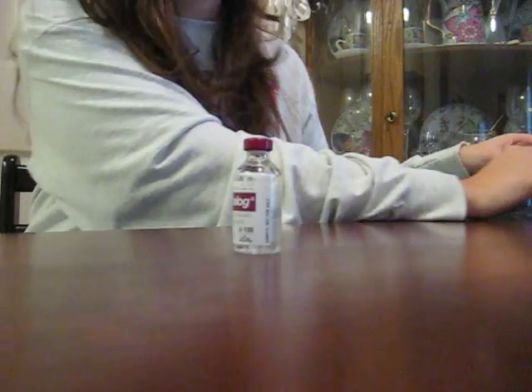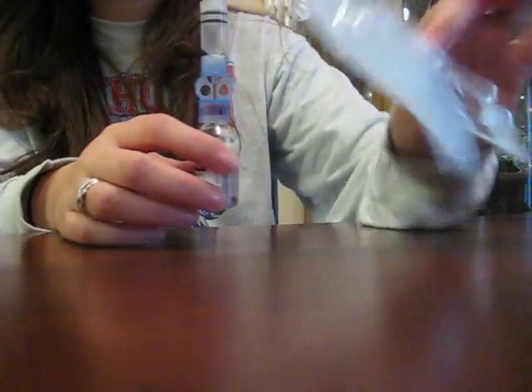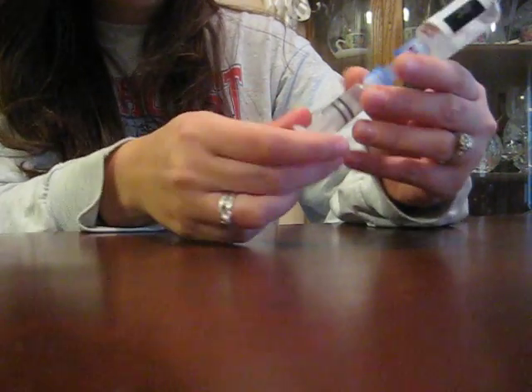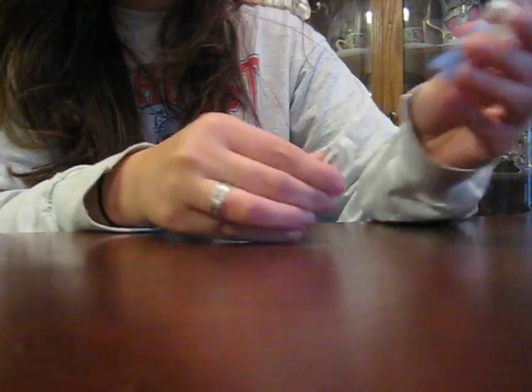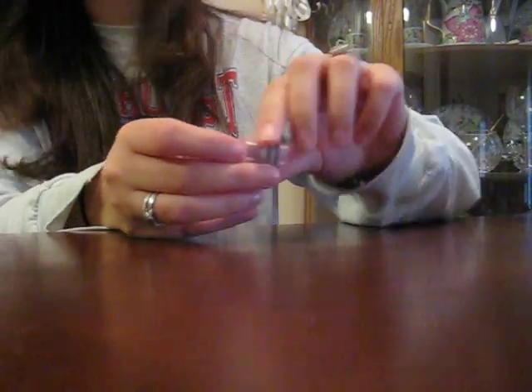The way I would start off changing out — which I do every three days — is I would get my insulin, much the way you get a syringe ready, and you just pop this on the top. This all comes individually packaged so it's sterile. You would push the lever down until you got the area, then turn it over and pull it out. You disconnect the top, disconnect this from your vial, and put your vial back because you're done. This part is thrown away, and then you pop this out and that's thrown away too, and you're left with your insulin.